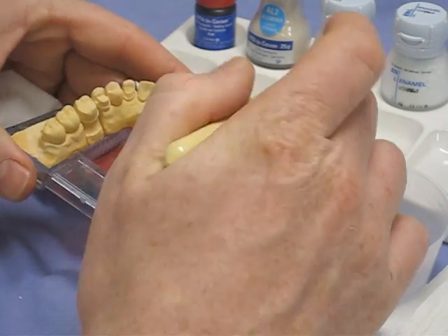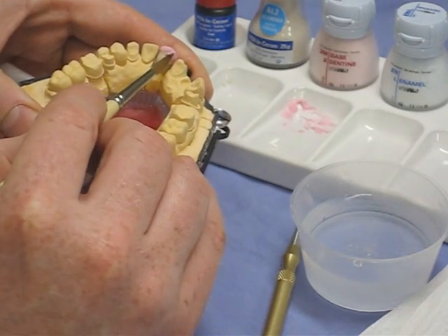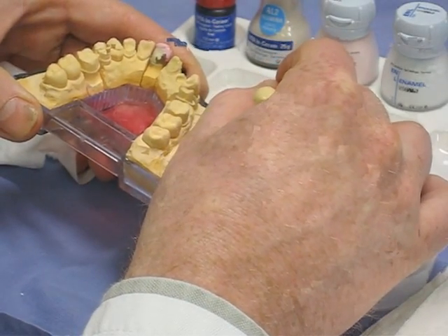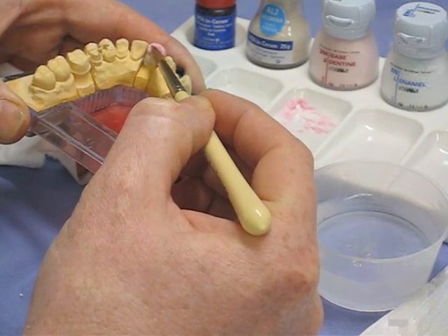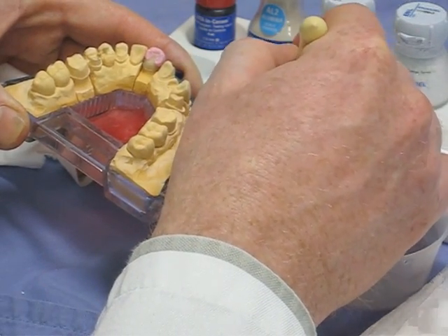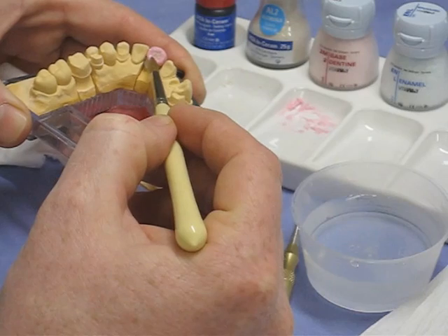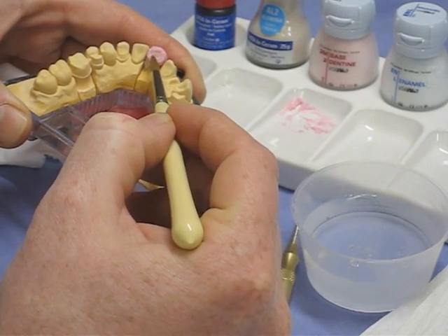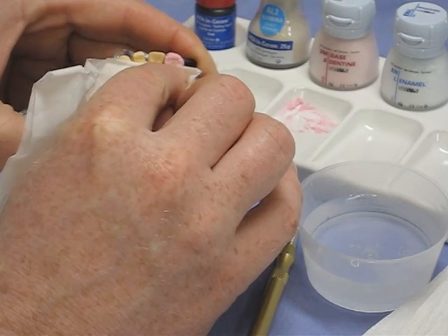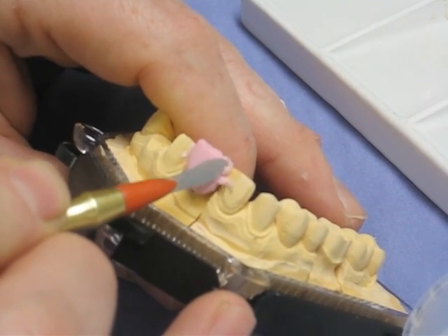This is the most basic technique: we use the base dentine to build up to full contour, then cut back and apply some enamel shade. We'll try to create some mamelons in the labial surface to give a little detail. Looking at the ceramics kit, you'll see a whole range of ceramics varying in translucency and colour. We can put different ceramics around the margin, use internal colours to create enamel cracks, and use the dentine shade as a transition in translucency.